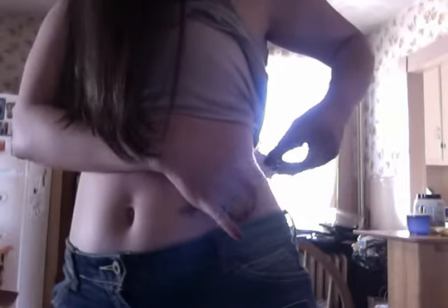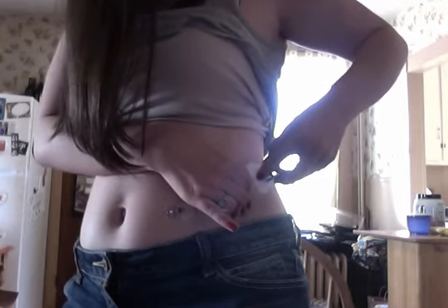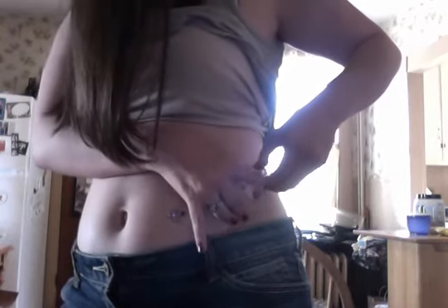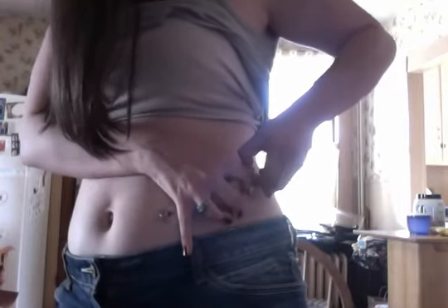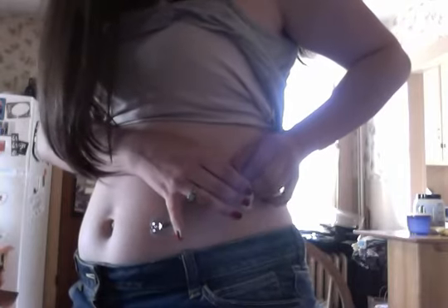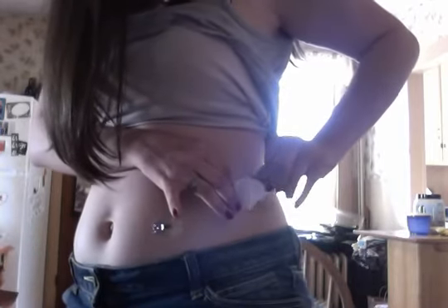My t-shirt will not stay up. There we go. And then ready? You gotta pinch some skin. Now that it's in my body, I'm just gonna take the needle out by grabbing this black piece. And there you have it — that is now out. Then I just lift it, take the sticky off, put it on, and then I hook up my tubing.